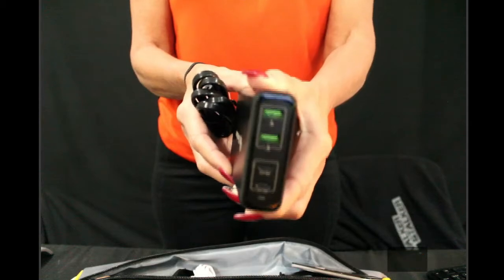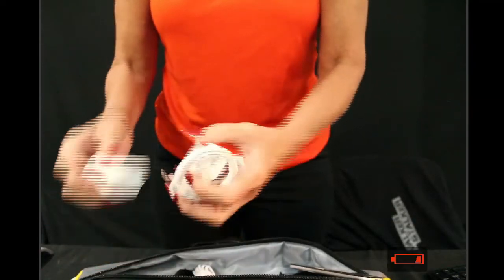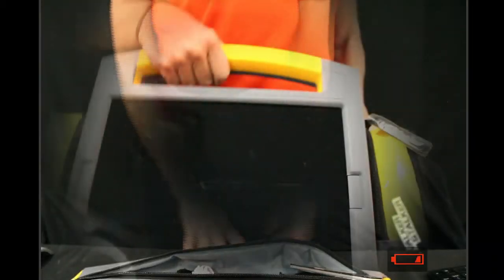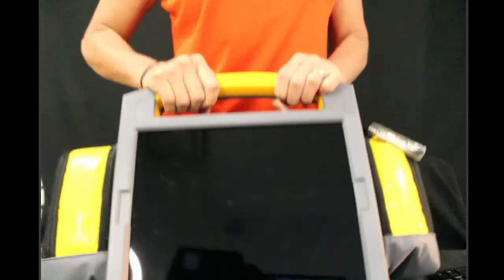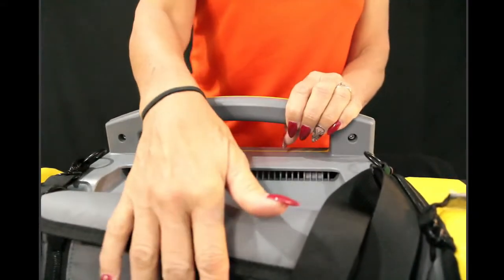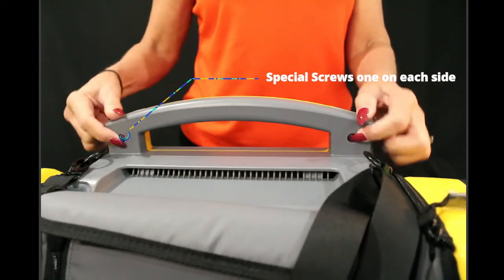The next item in your accessory pack is going to be a portable battery pack to charge your iSimulate, and it comes with its power cord. There's also going to be in the accessory pack your charging cords for your iPads, and it comes with bricks as well. In the suitcase, you will also find the actual iSimulate monitor, and you'll notice that the iPad already comes installed in the front. In the back, if you need to take it out for any reason, you'll have two screws and a specialized tool it comes with to remove it, though you shouldn't really have to remove that front screen.